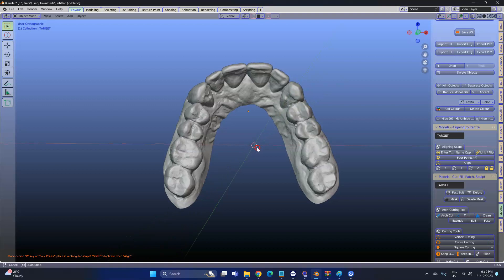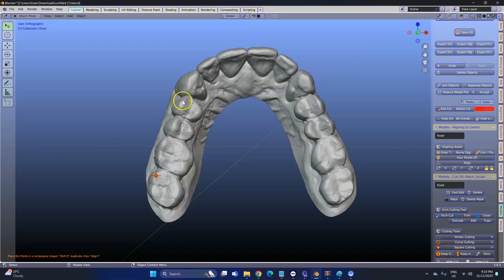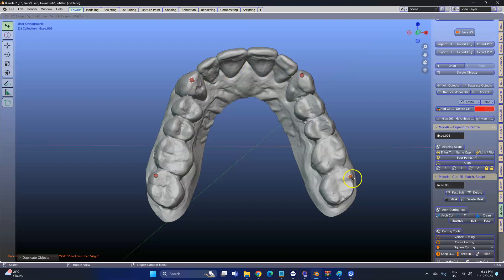Rotate with your mouse wheel. Shift right-click to place my cursor, then click the P key — if the P symbol on your keyboard doesn't work, use this one. Shift right-click to place my cursor, press P, and then you can go Shift+D if you want to duplicate. This will show in the lower section of the tooltip.